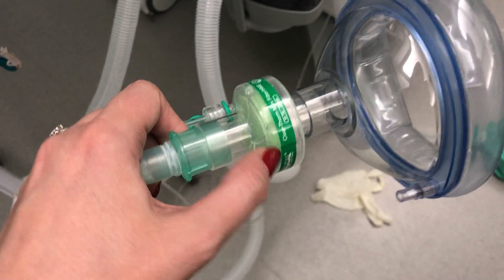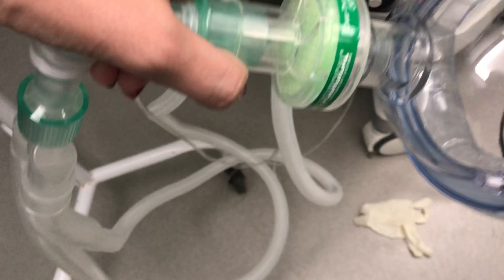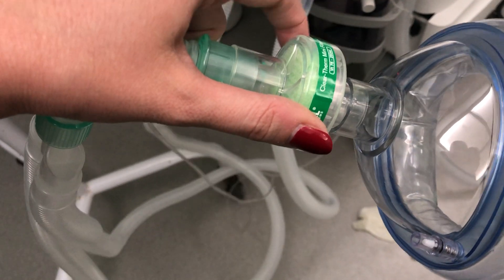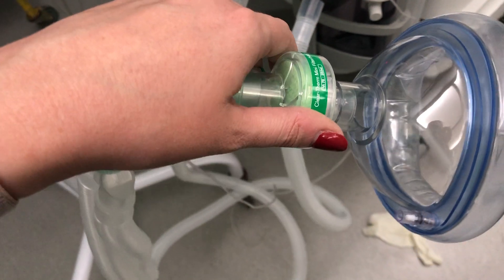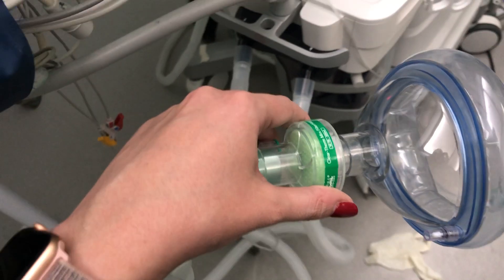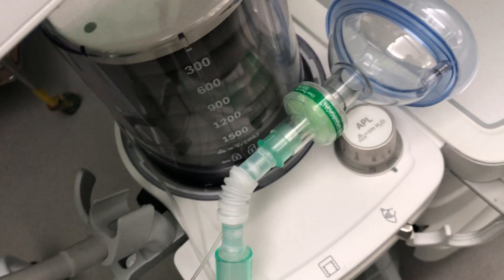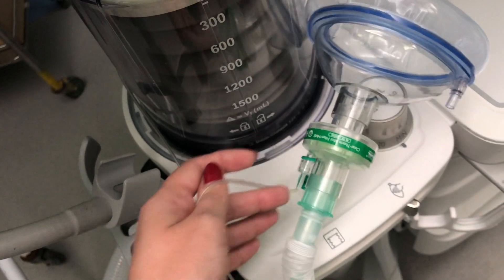Prior to the mask we always have an HME filter attached — a Heat and Moisture Exchange filter. It serves two purposes: first, it prevents bacteria from the patient contaminating the machine; second, it captures the heat and moisture that escapes from the patient's airway and gives that heat and moisture back to the patient on the next breath. This is important because when a patient is intubated, the body's normal airway can no longer heat and humidify the inspired gases.